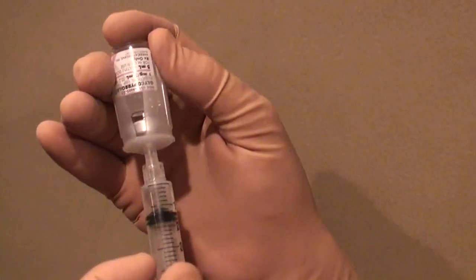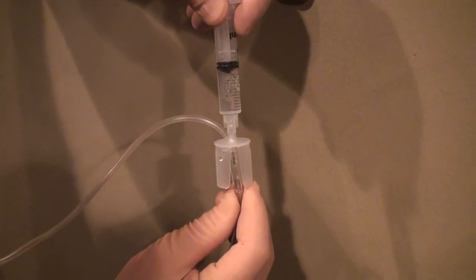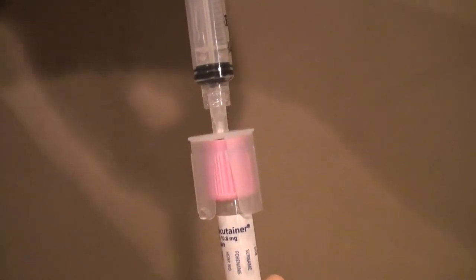I hope you enjoyed this introduction of the MedMate — your personal mate whenever medications or biological specimens need be withdrawn or injected through rubber stoppers. Whether it be drawing up a medication vial, injecting a drug into an IV line through a rubber stopper, or transferring biological specimens into a specimen tube, MedMate is always there to keep you safe.